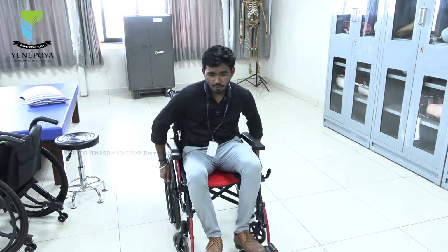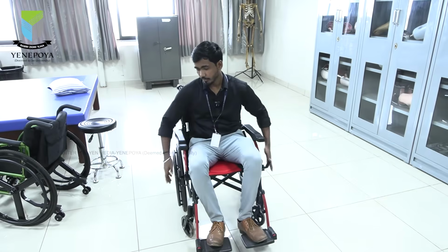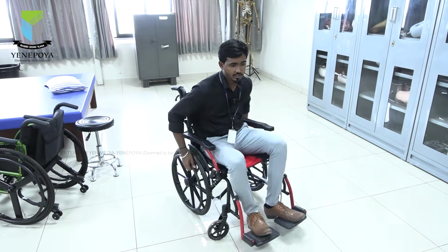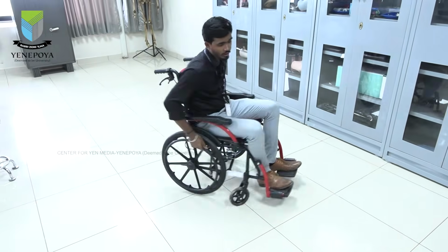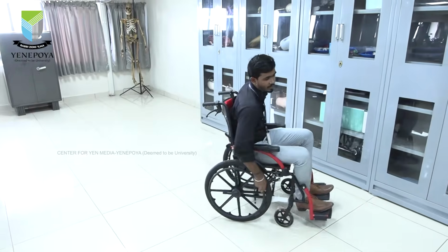There is another basic skill called sideways maneuver. Maneuver means just moving from one area to another area. So how can we change this, like with this wheelchair towards this and this, like this. It's very simple, you have to go a little bit front and you have to pull towards the other side. Again you go, again like this, like a string kind of thing, so that you won't cover that much area going forward and backward, yet you will go sideways.